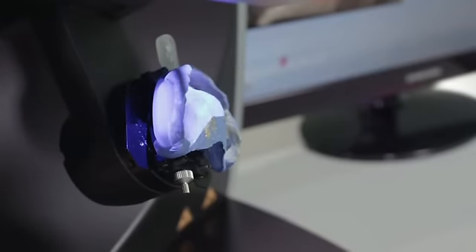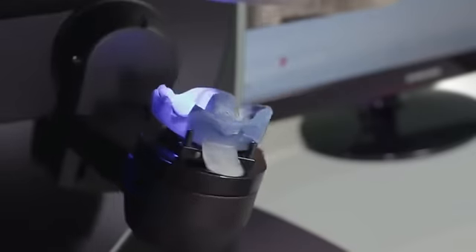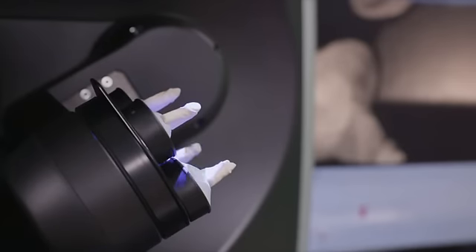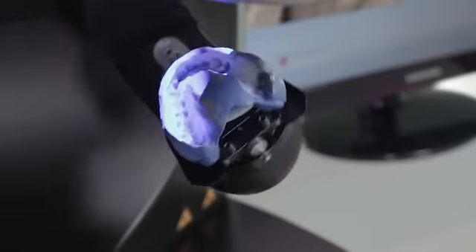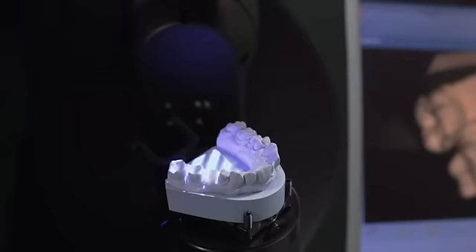Combine the best of all worlds with multiple scanning methods, including the robotic arm which allows for free movement in any direction, multi-die scanning for scanning several dies simultaneously, as well as scanning of physical impressions rapidly and reliably.